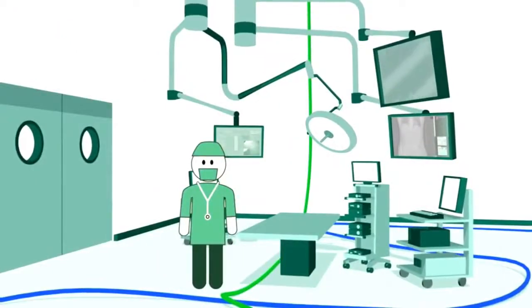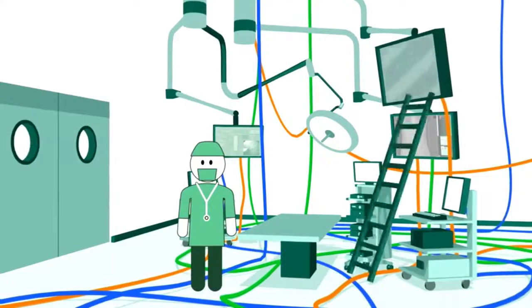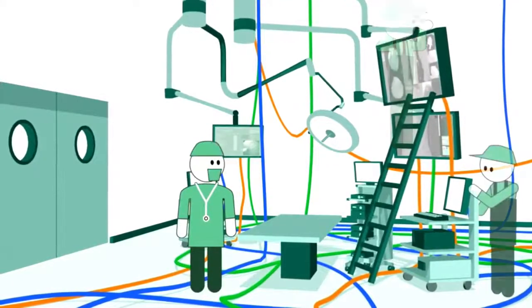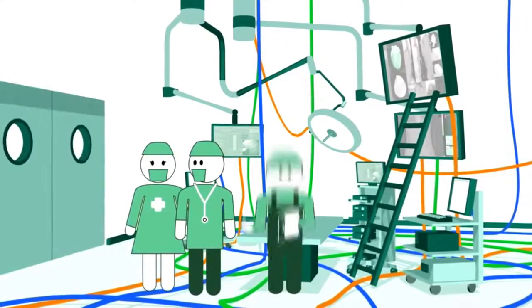They're stuffed with all kinds of systems and devices causing cable clutter and distraction. Maintenance downtimes and cumbersome technical setups slow down your workflow, and people run in and out for all kinds of reasons.